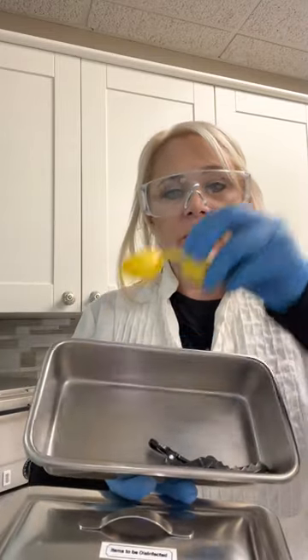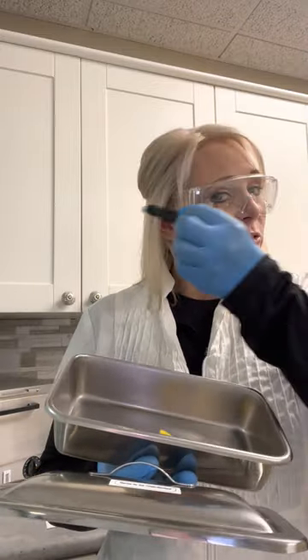The first thing we're going to do is gather all my items from my cart in my tray that says 'items to be disinfected.' These are items that would melt if they went into a sterilizer. There are critical items and non-critical items. Critical items are things that come into contact with blood and bodily fluids that would pierce the skin — items like tweezers that would need to go into the sterilizer, or our probes, which come pre-sterilized in a packet. But we do need to worry about items like goggles, clips, and these little white probe caps — always the most important items we're disinfecting.